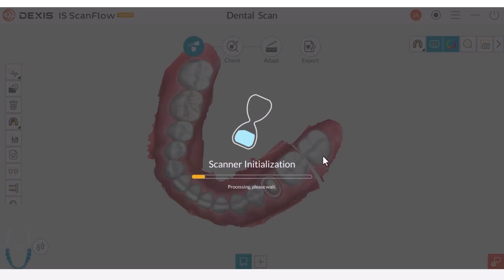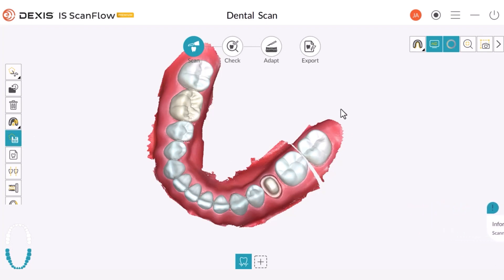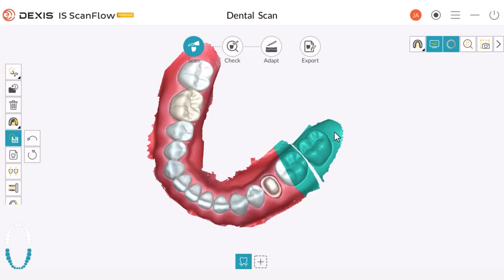The software will undo the refinement and you are now able to see again the primary data that you captured while you were in scan mode. Now imagine that your patient left before you proceeded to the check step and you notice that a part of the scan is gone. The patient is not available to be re-scanned. What you need to do is engage the Keep button. With the Keep button engaged, we are going to select the entire area and some extra around it. This Keep tool does not lock the scanner out from adding new data. You can use this button to save the data in the scan step so the software will not remove it when you proceed to the check step. In this way, you don't have to bring the patient back for another visit just to fill in this gap.